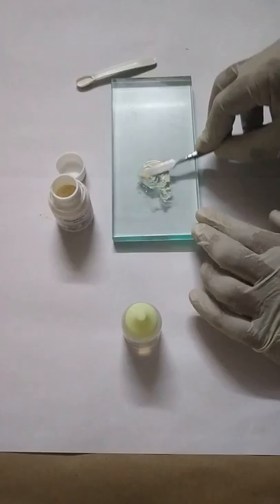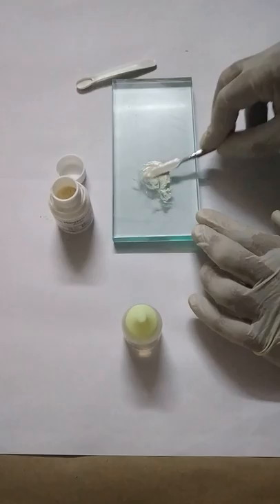Over a larger surface area you mix like this in a circular manner.